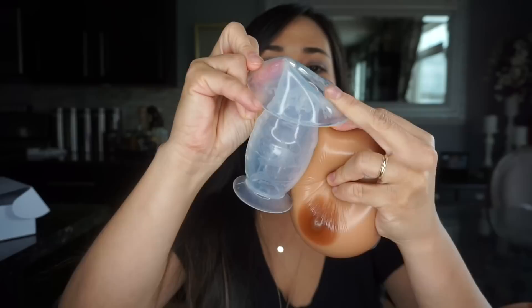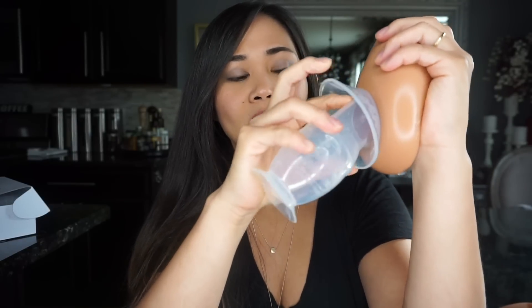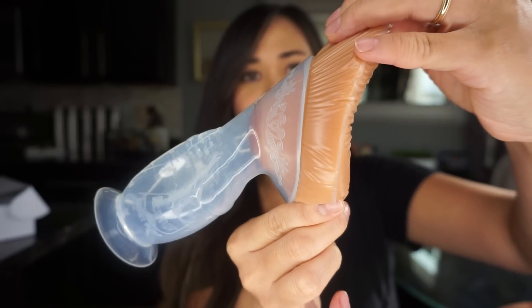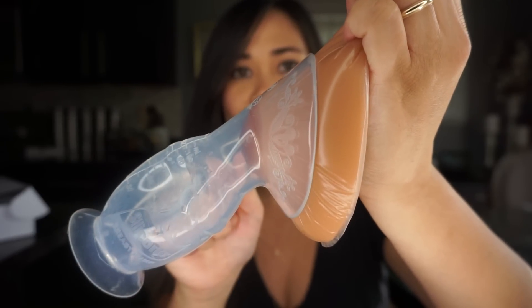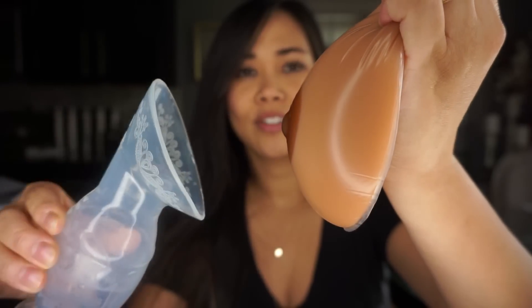Let's do this again. You fold the brim, you put it on your nipple, you suction on the bottom, and voila — look how tight that is, look how tight that is. Look how much boob is inside. And I'll show you what it looks like with just the regular way. So that's the great technique that I'm talking about.